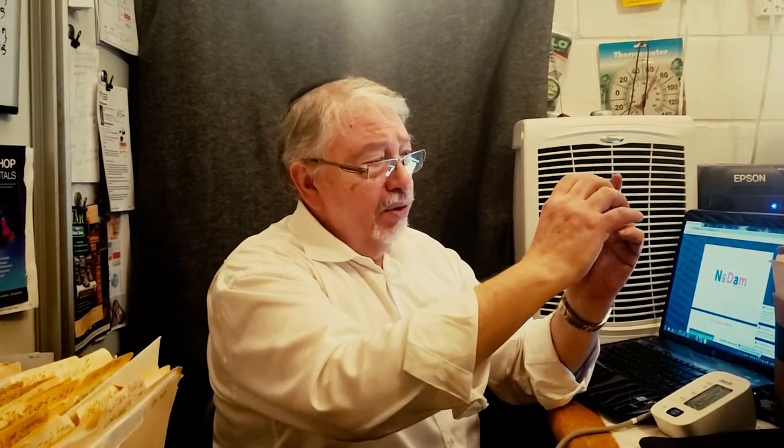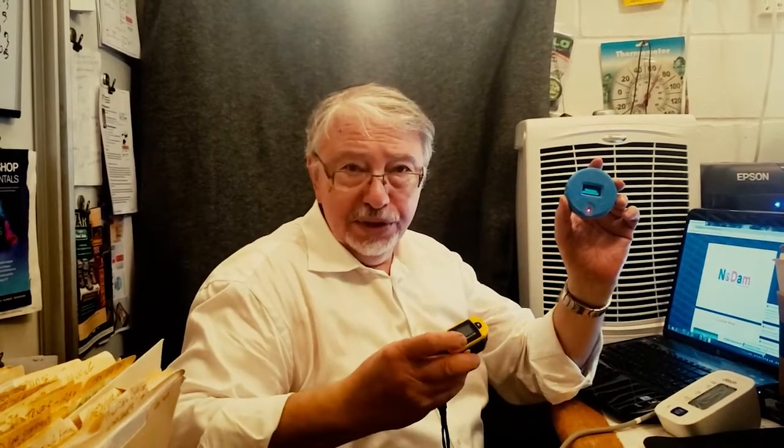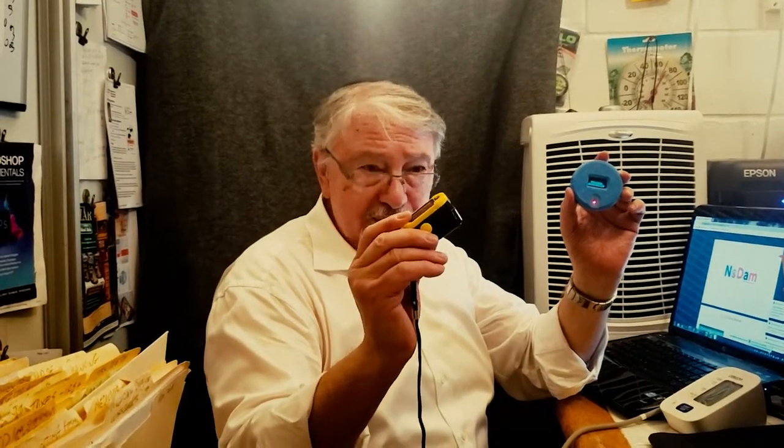The wonderful thing about this device is that it is small, compact, and portable. It uses rechargeable batteries and it's only about three inches in diameter by three-quarters of an inch in thickness. However, this is only the first prototype. Our second generation device, which is in development at the moment, will be the size and shape of a pulse oximeter, making it even more convenient to have with you when you need it.